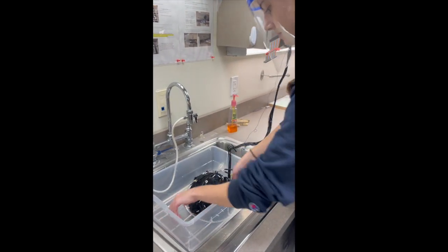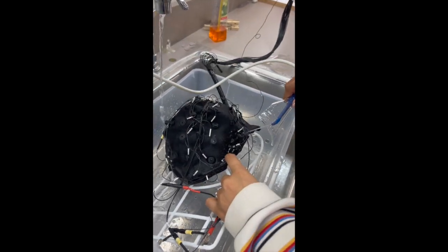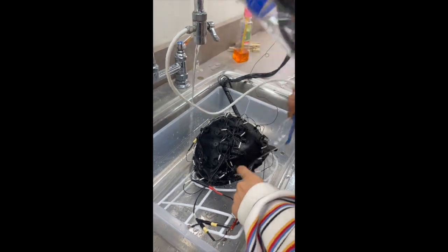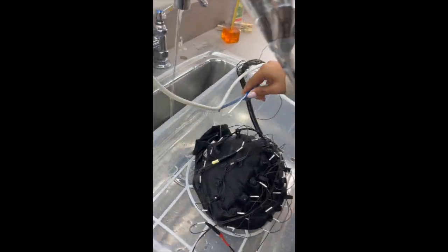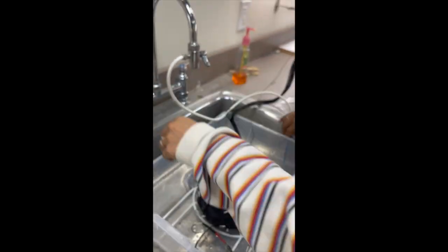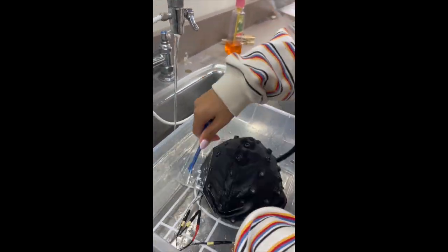Place the wash tub in the sink and place the cap into the wash tub, then get the inspector to come and inspect the cap. The inspector should wash the cap row by row with the water jet a second time, ensuring that all the gel clumps are out, following the same procedure as before.